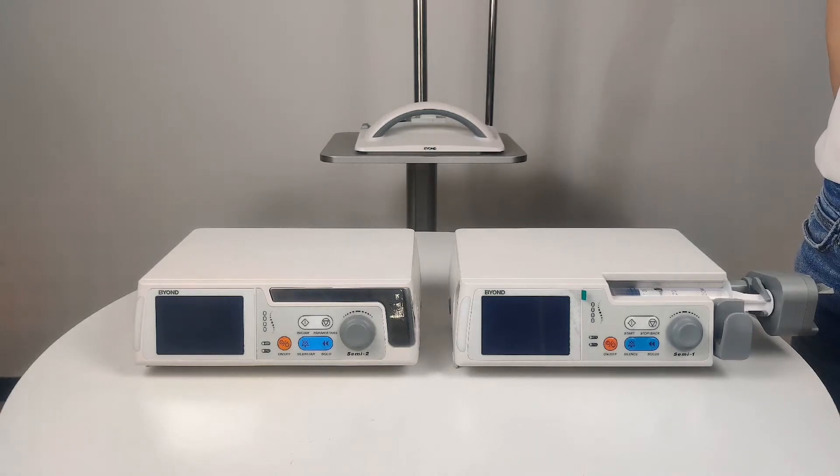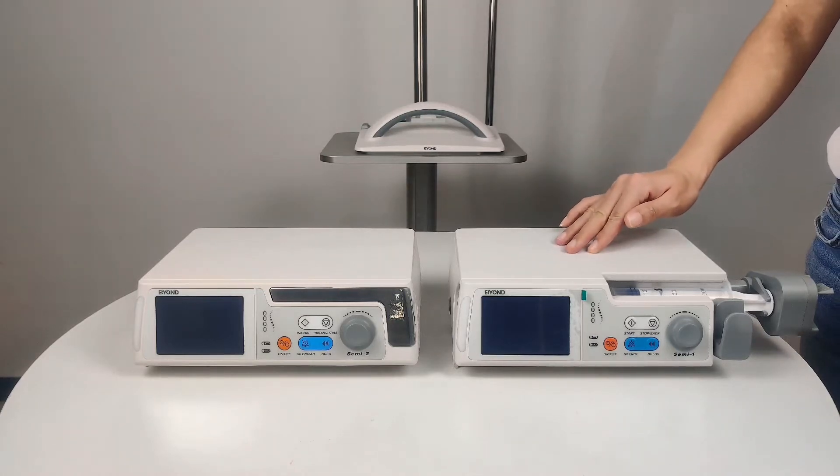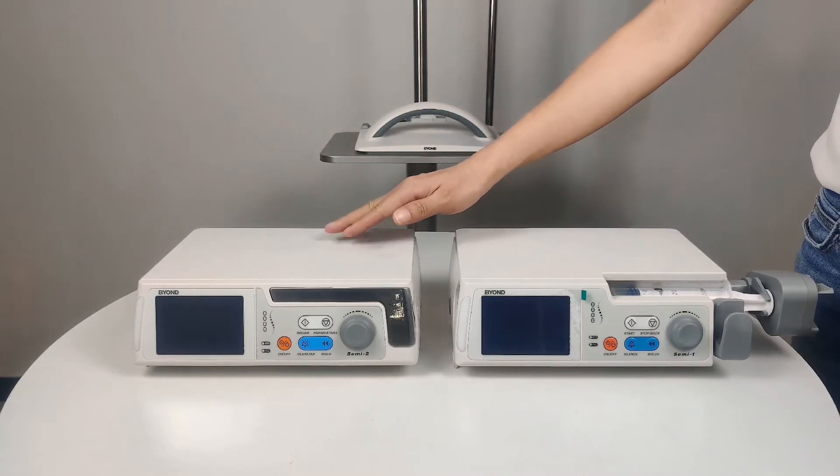Hello, I will show you the combination of syringe pump and infusion pump. This is our syringe pump, and that is our infusion pump.